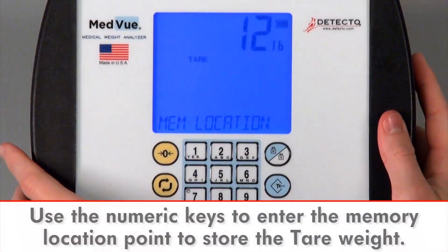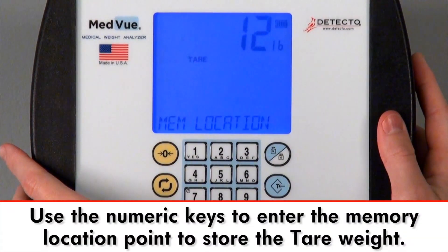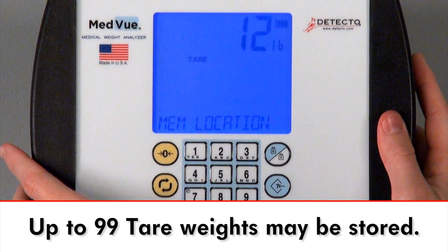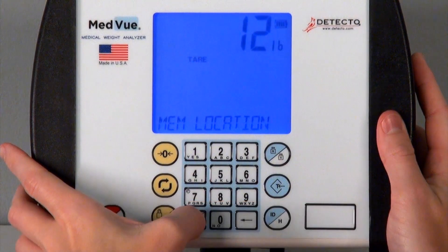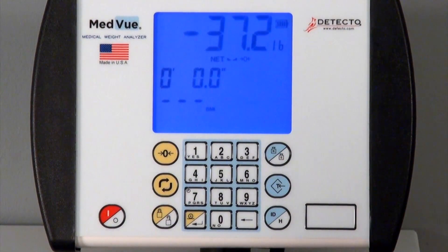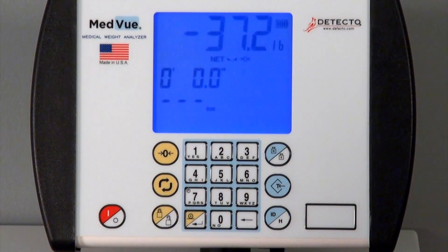Use the numeric keys to enter the memory location point where you would like to store the tare weight. Up to 99 tare weights may be stored. Press the Enter key after assigning the ID and then weigh the patient as required.